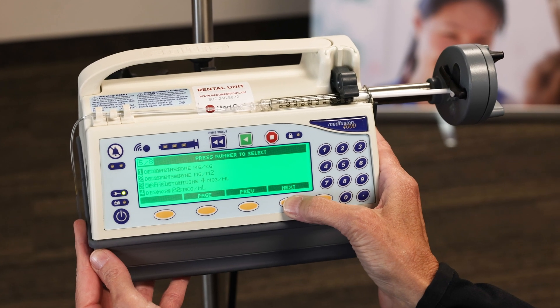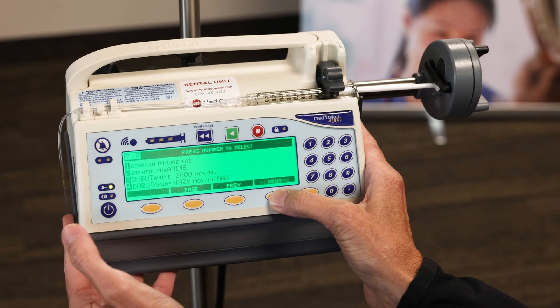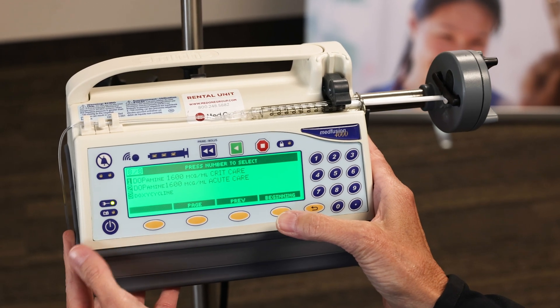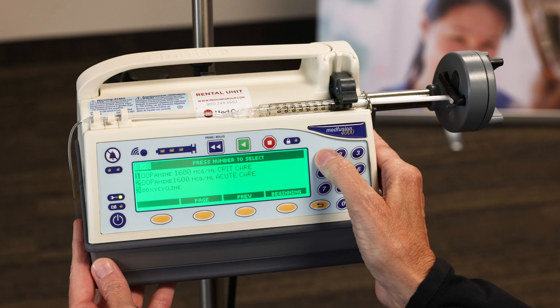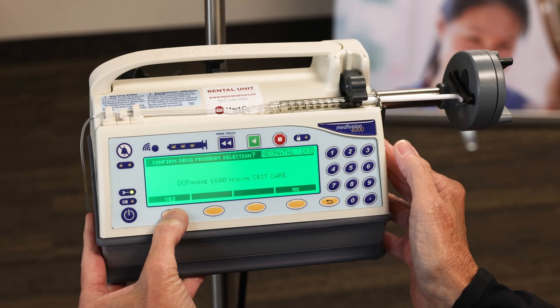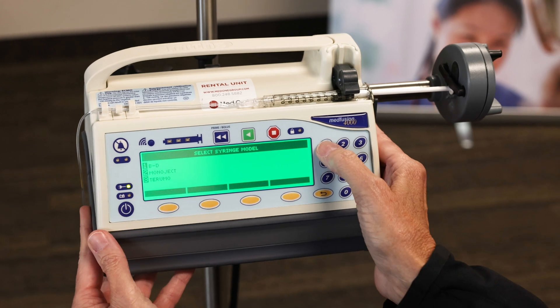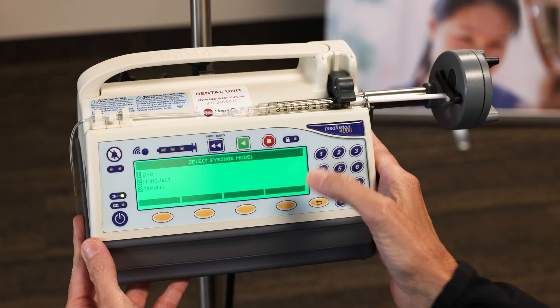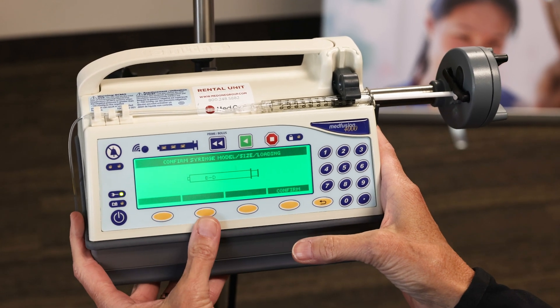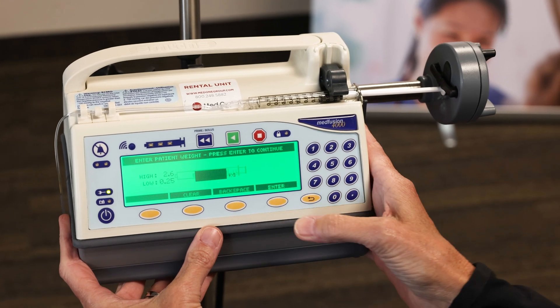You'll see there's tall man lettering for those sound-alike and look-alike drugs. I'll be using the first one, the critical care dopamine, and I will say yes, that's what I want. Confirming that my syringe is BD, and I'm using a 1ml, and we'll confirm that.